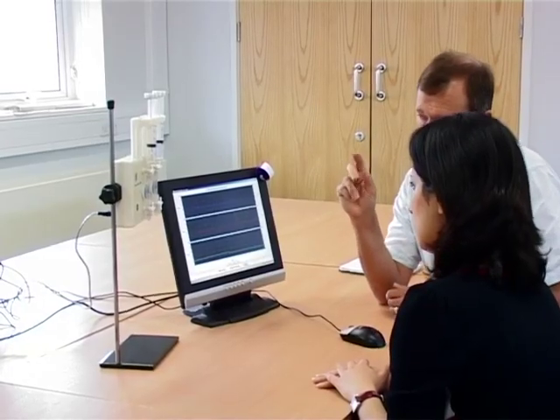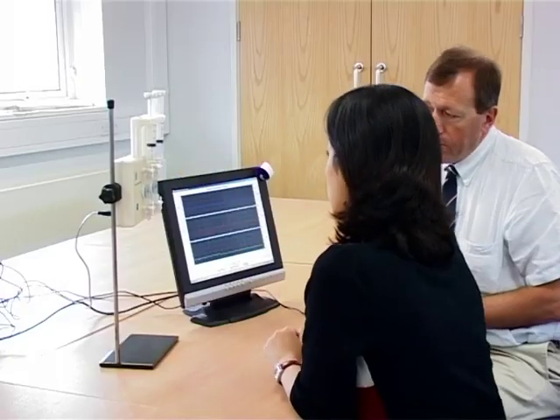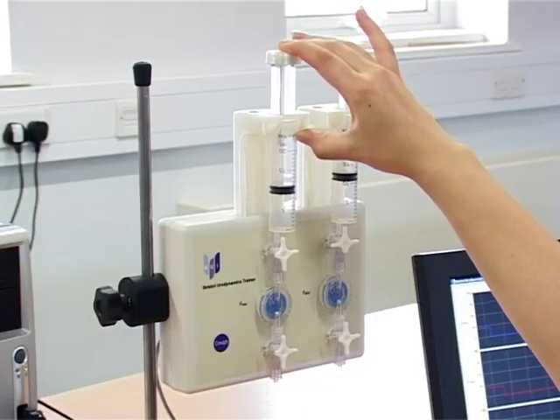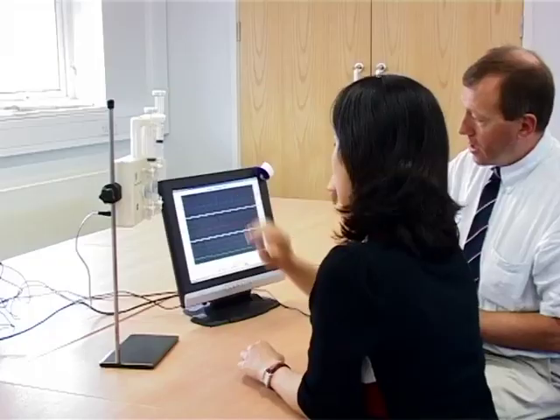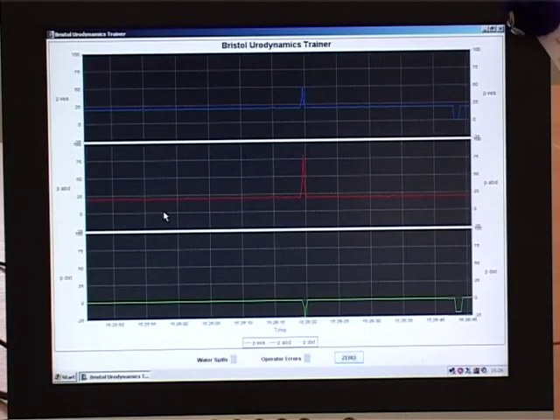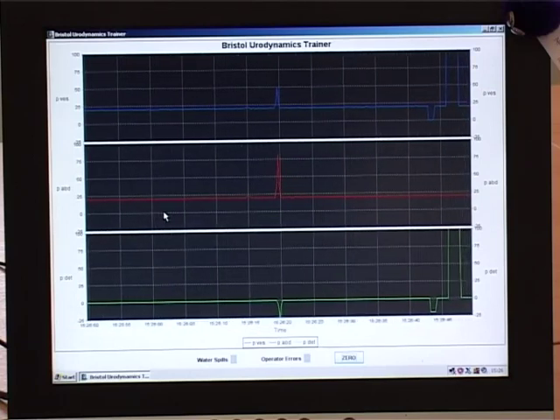If this was a real machine, the air bubble will need to be flushed out using the correct procedure. Again, just as on a real machine, the pressure will rise to a high level during flushing, then when the top tap is closed, another cough will show transmission has been restored.